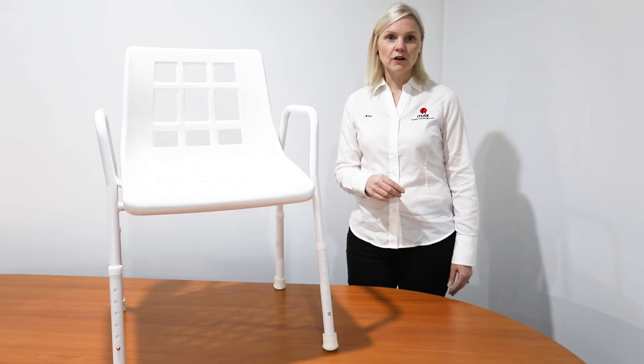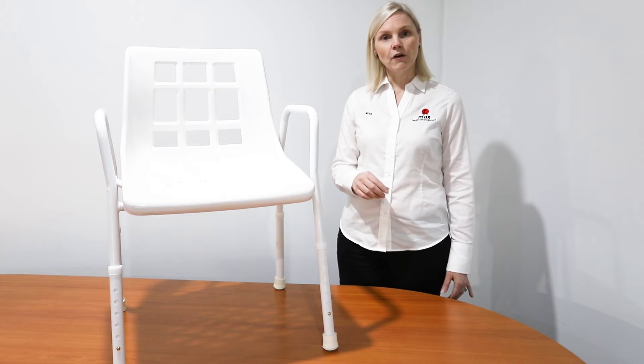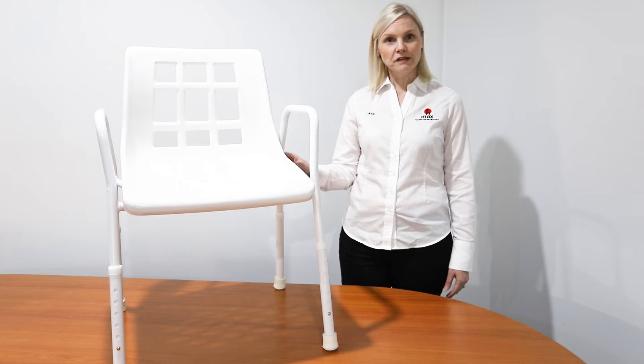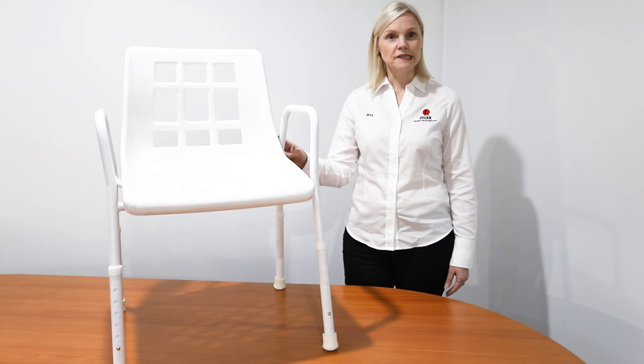The footprint on the shower chair is 545 by 515 millimeters. The shower chair has a plastic mold seat which is 440 millimeters wide.